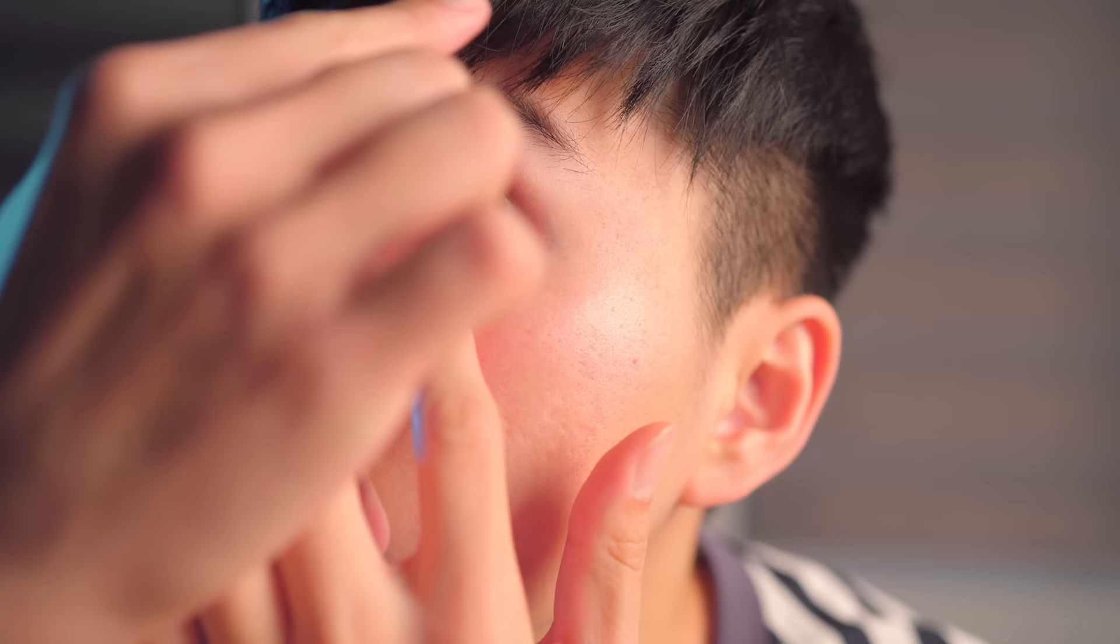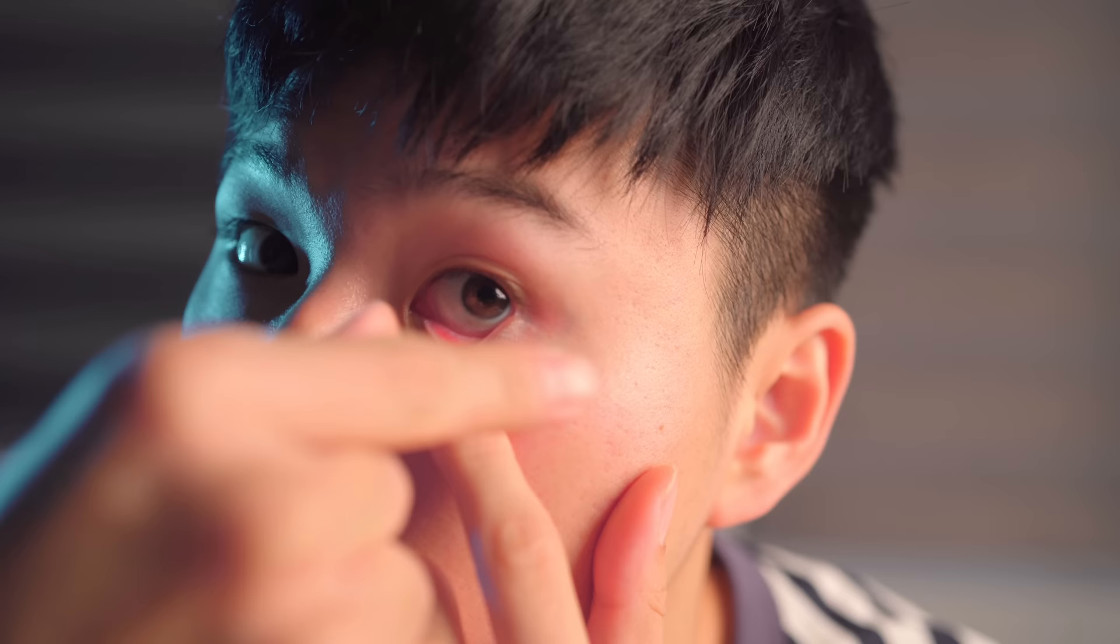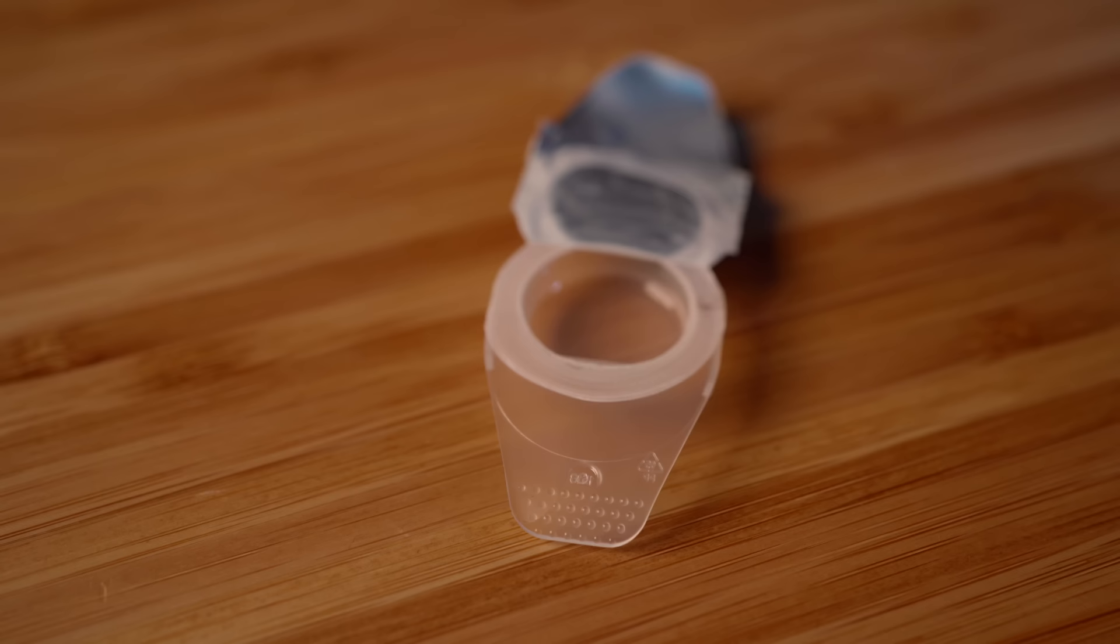Once the lens sits lower, you want to slide your two fingers onto the ridge that the white and the pink part of your eyes make. The common mistake here is that patients don't pinch the lens. They don't get close enough and end up pinching the air above the lens.